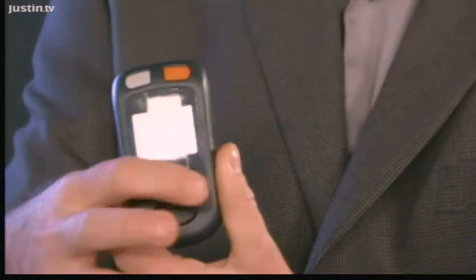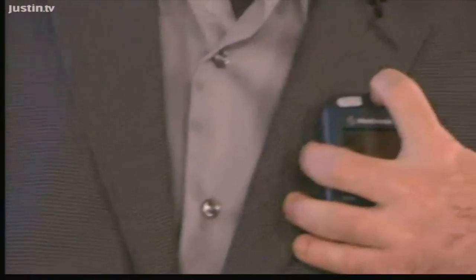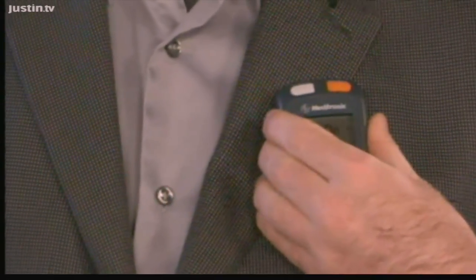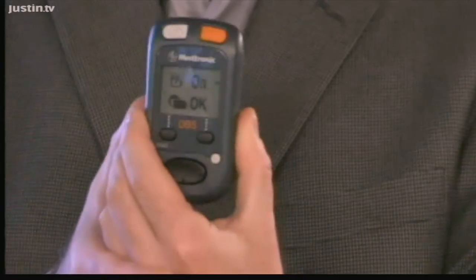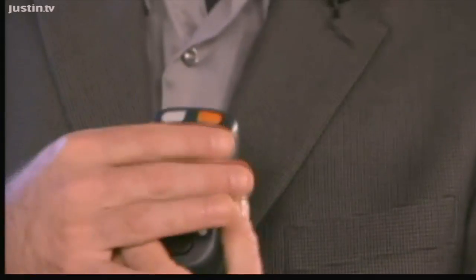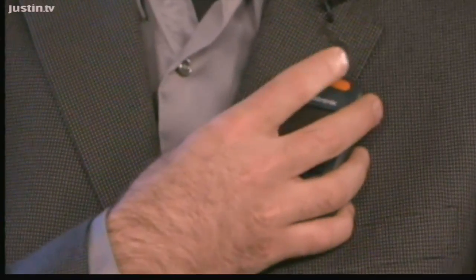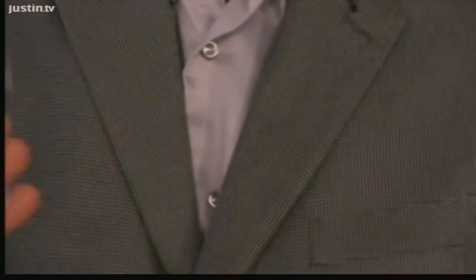I can show you — when I turn on the device, the first thing it tells me to do is run my checks. I hold it up to the device on my chest, push the check button, and it checks and says I'm on and everything is going okay. The next thing I do is actually turn the device off since it already said I'm on. Once I turn it off, you can see the tremor comes back immediately. When I turn it back on again, the tremor is gone. It's just that simple.